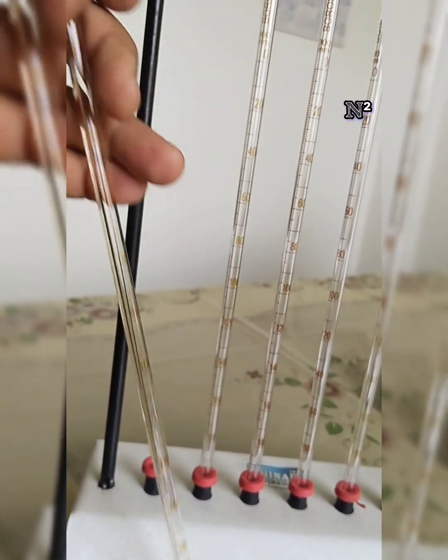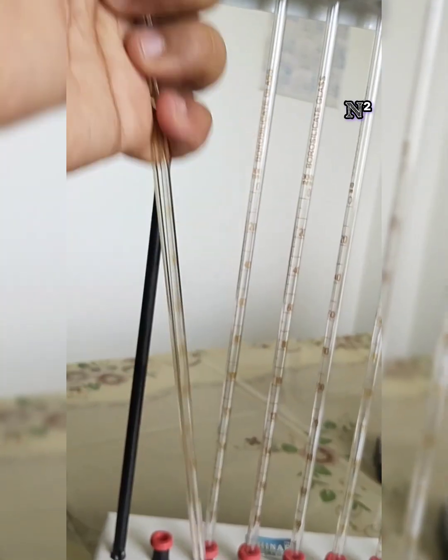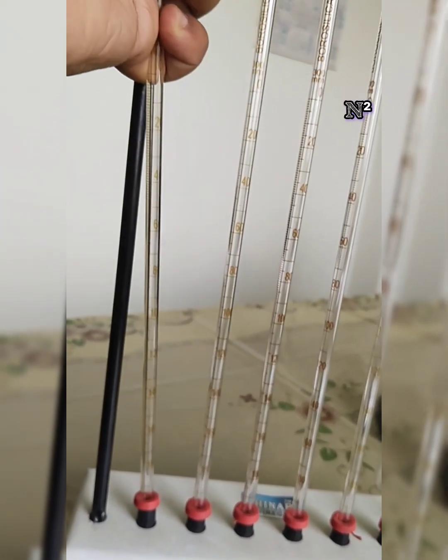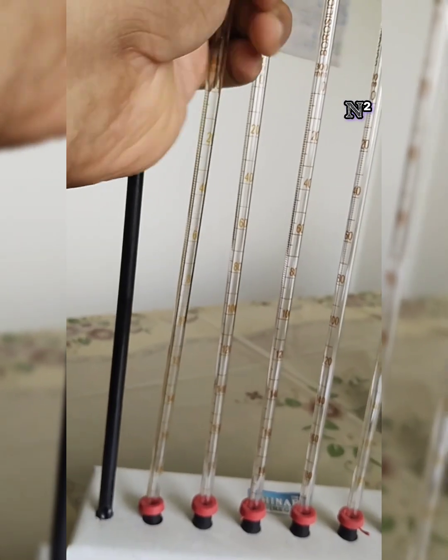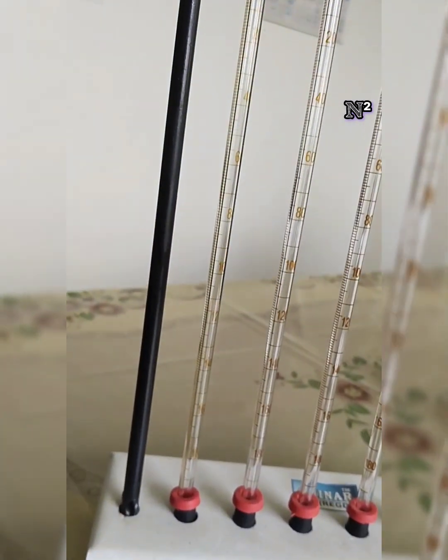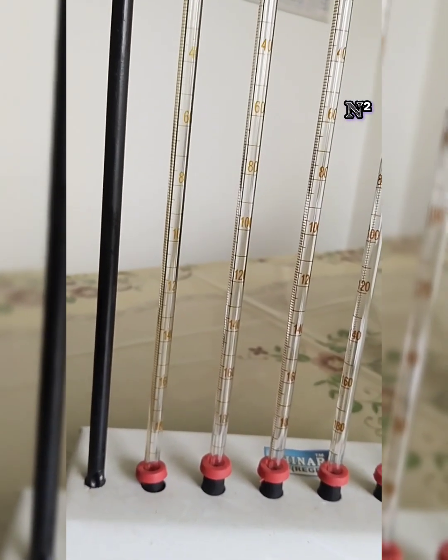So supposing you have entrapped the blood inside, you hold the upper end, bring it and place it firmly on the base, that is the rubber pad. This rubber pad has a clip mechanism, so whenever you press it, it goes down.